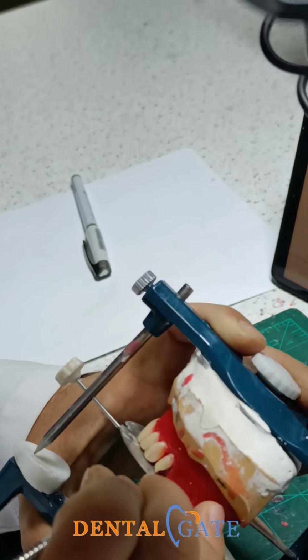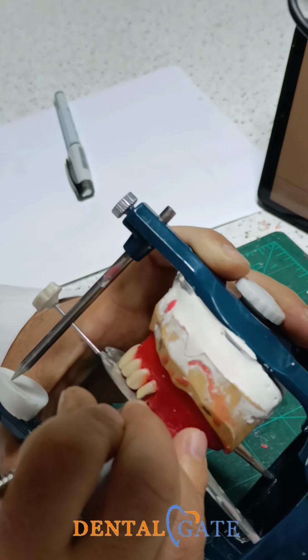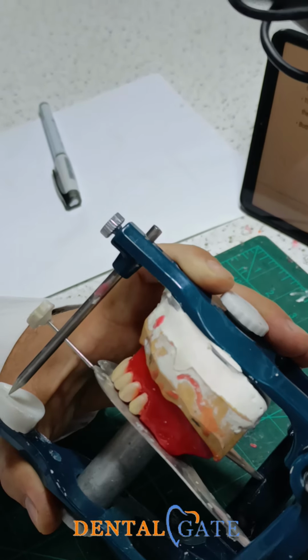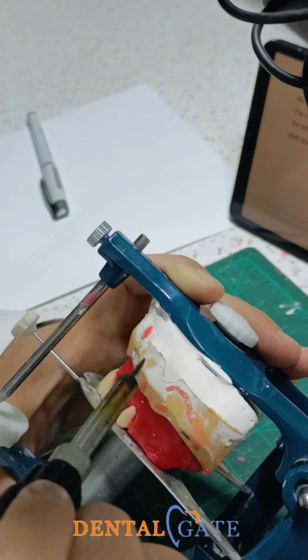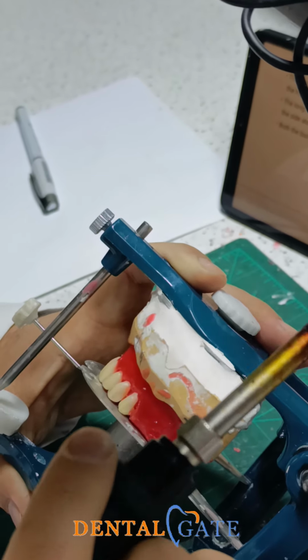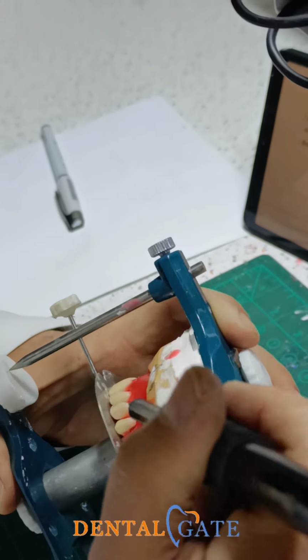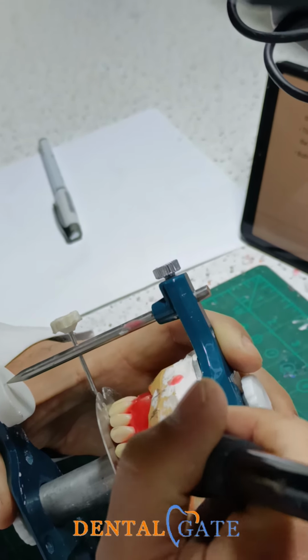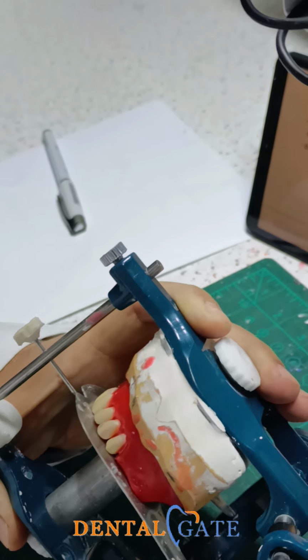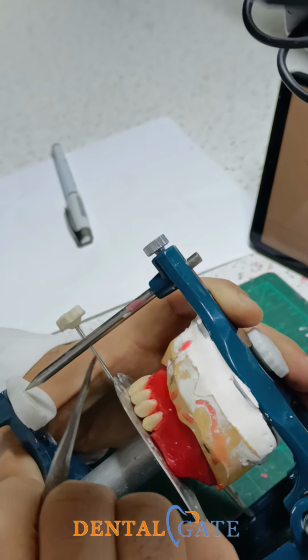Be sure the long axis is parallel to the vertical axis. If you want to make an inclination to the distal, my recommendation, don't make it now. Wait for the lower teeth to have a good intercuspation, because some artificial teeth have several anatomical shapes. So with the original one, I told you to make, eventually, a complete intercuspation with the lower.